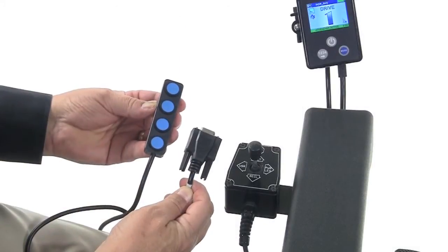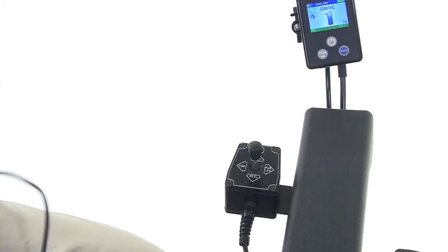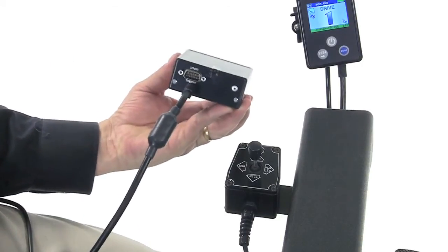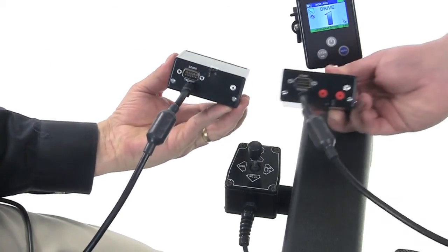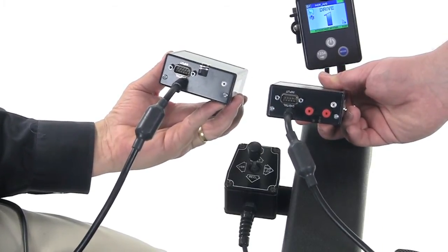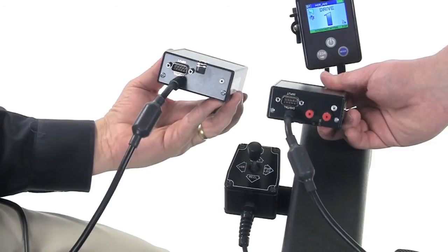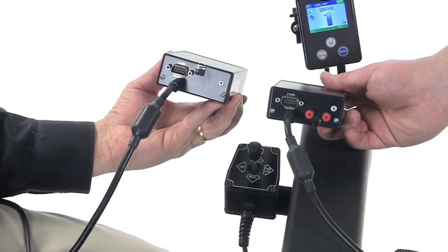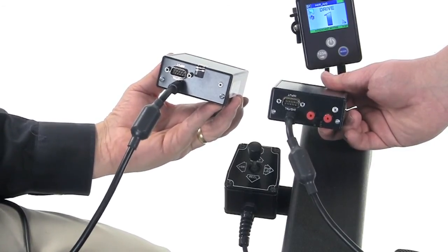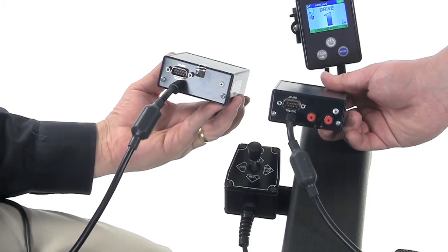The four-way toggle or the quad push button plug into a power seating box on the chair — either a standard four-way switch box or a multiple actuator interface box, sometimes referred to as a smart four-way switch box. The multiple actuator interface box also enables power seating to be operated through the driver control; the standard four-way switch box does not.